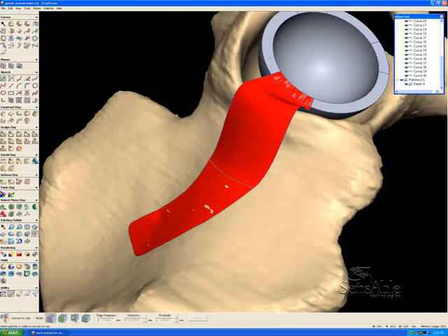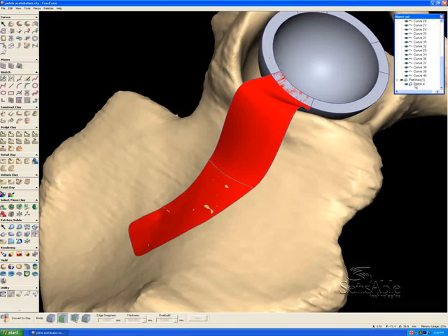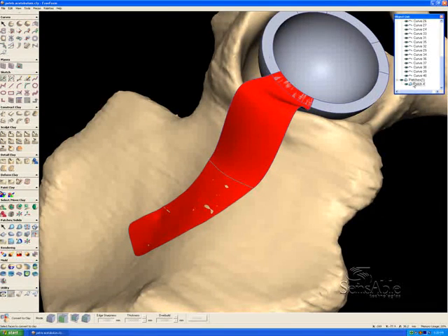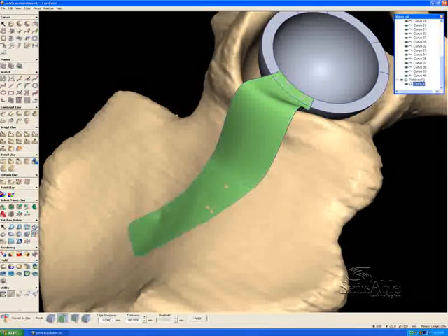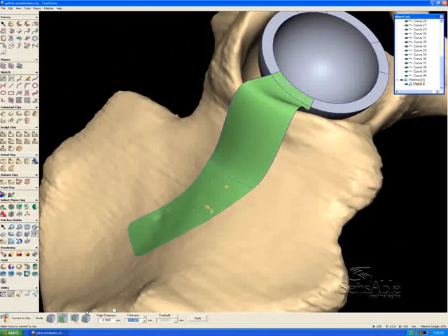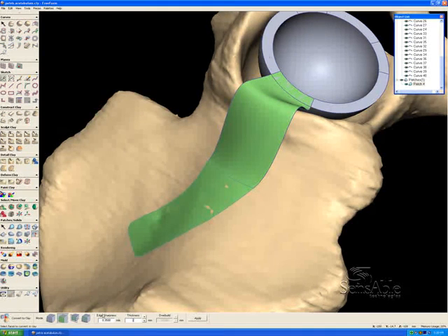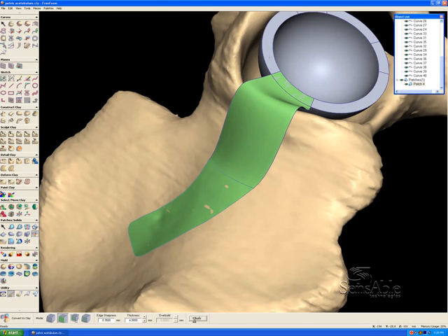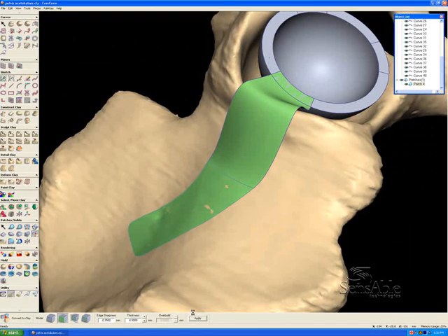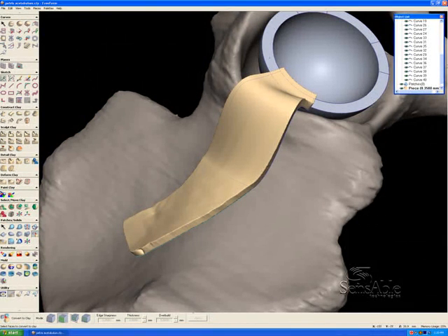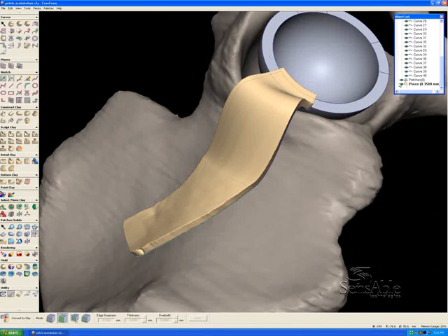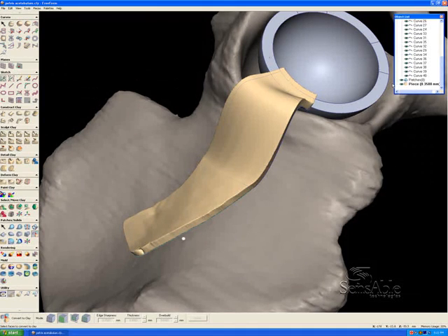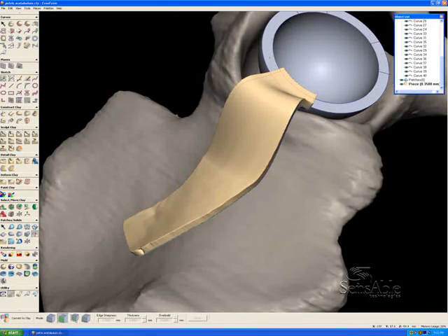Here, I'm going to go into a function where we thicken this sheet. So I'll select the sheet in the object list to select all of it at once. And then I'm going to go down here and select an edge sharpness of 0.35 millimeters and a thickness of 5 millimeters. Actually, let's make that 4 millimeters. And then we'll say OK. We'll apply that. And what that's going to do is create a thickened representation of this surface in virtual clay that then we can sculpt and model however we see fit. And you can see the representation here. What's happened to the patch, however, is it's disappeared and it's been replaced by a piece of clay. If we wanted that surface data, we would just export it simply as an IGES surface before the thickening process as well.